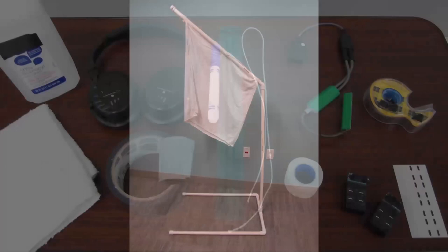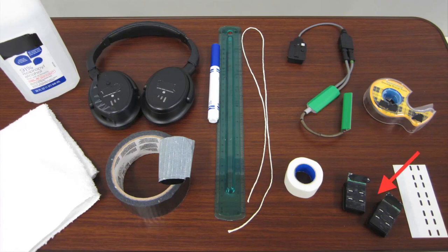This protocol requires fabrication of a visual screen. See written protocol for instructions. Begin equipment preparations by calibrating the electrogoniometer and EMG sensors according to the manufacturer's instructions.